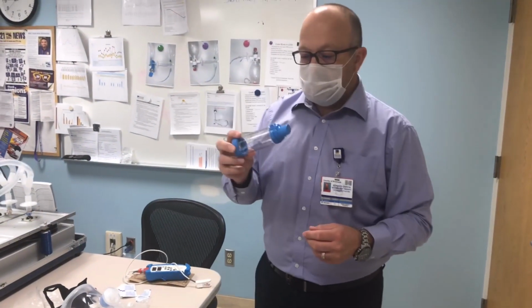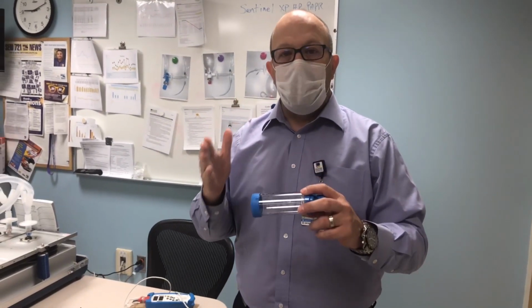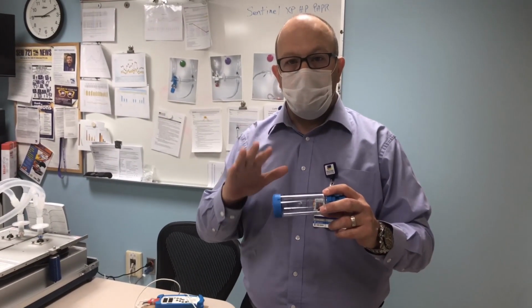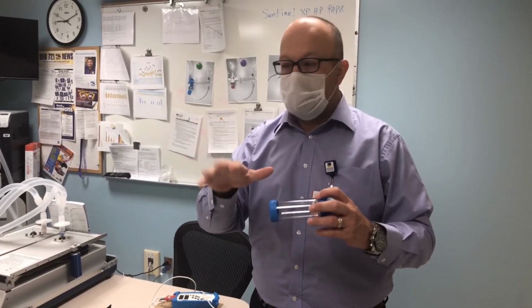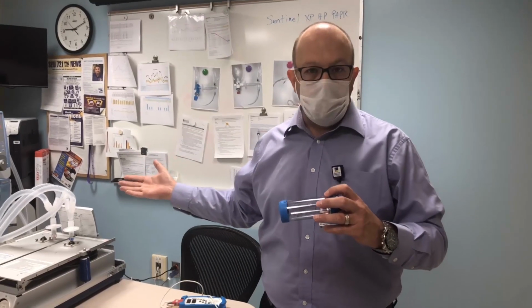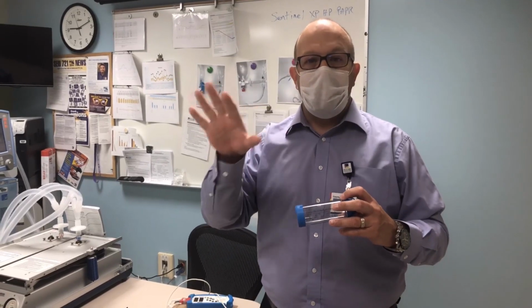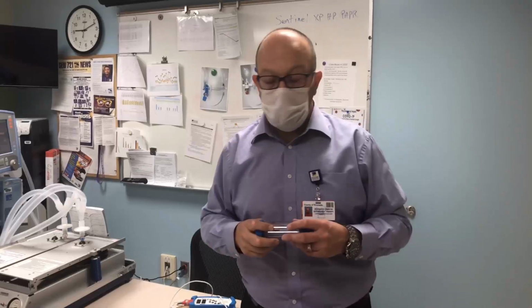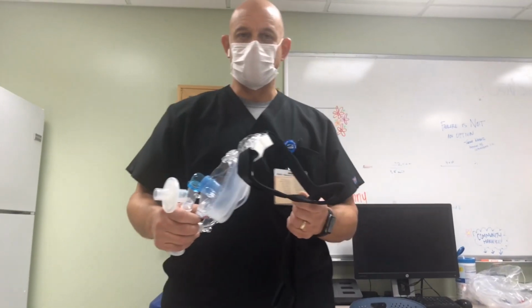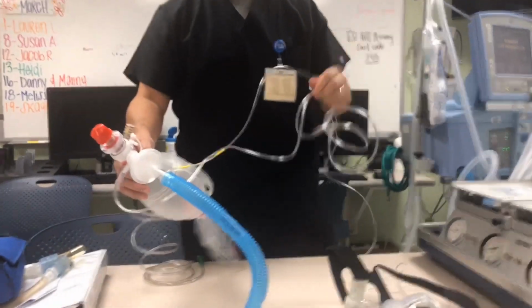So here we have a pretty simple spacer, but it's actually going to save us the ability to make sure that we manage our stock of metered dose inhalers. One of the things that has been recommended is no aerosolized medication out into the open. So what you have seen in the last couple of videos have been ideas and suggestions and things that we worked on to minimize that aerosolization to the public and especially to our workers here with the closed CPAP, the closed nebulizer for the pediatric patients, also the mask and also the ventilator.